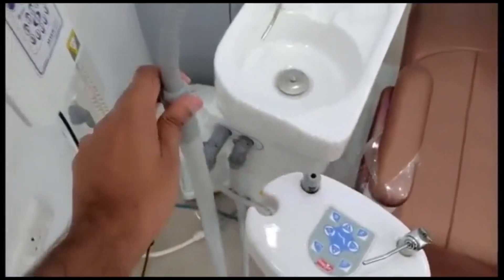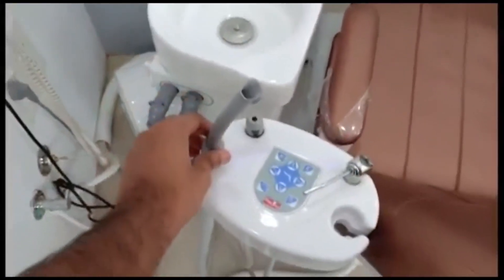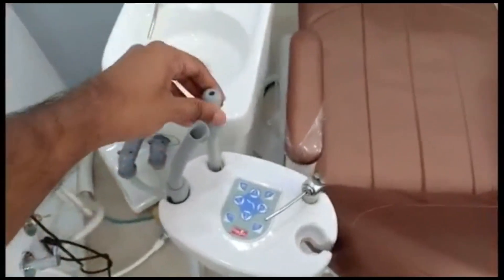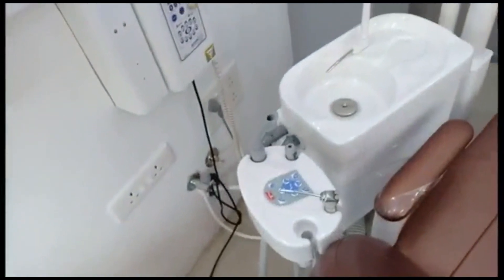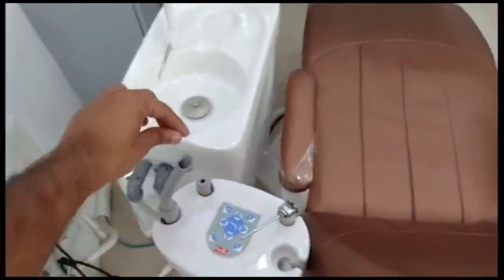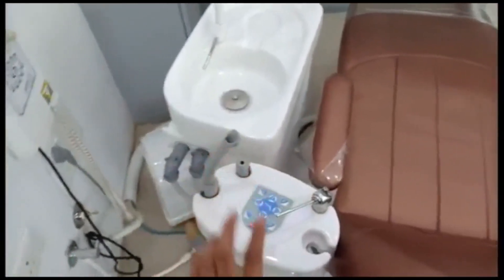These two are the suction units. We have two types of suction. This one is used for suctioning saliva and fluid while doing the procedure — a suction tip is connected here to perform the suction.